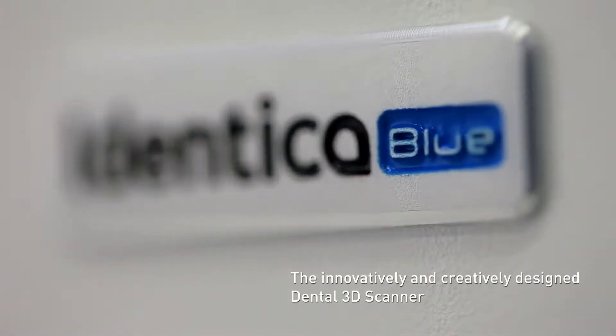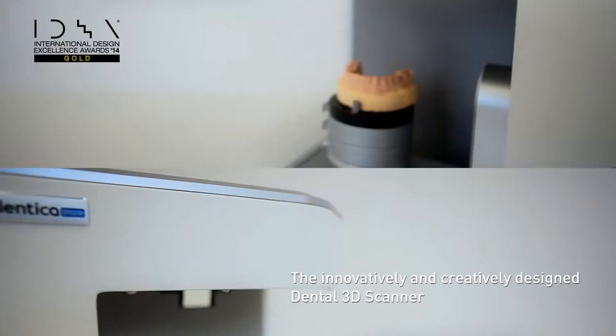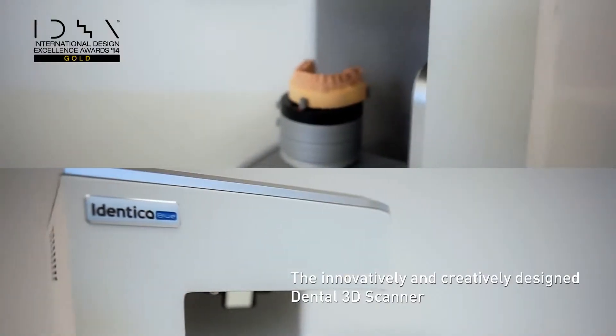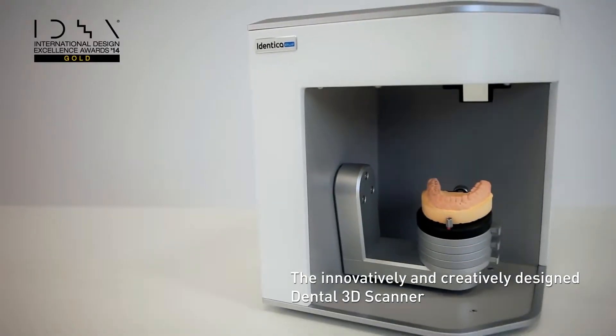Identica Blue is a 2014 gold winner of IDEA, the standard of international excellence in design awards in the medical and scientific products category for its outstanding and creative design.